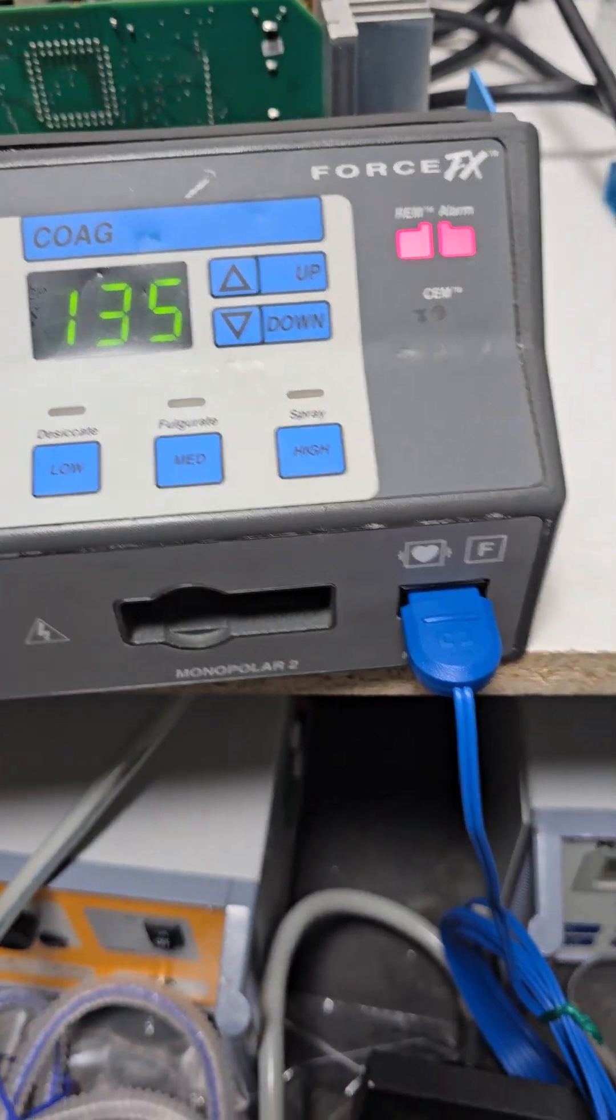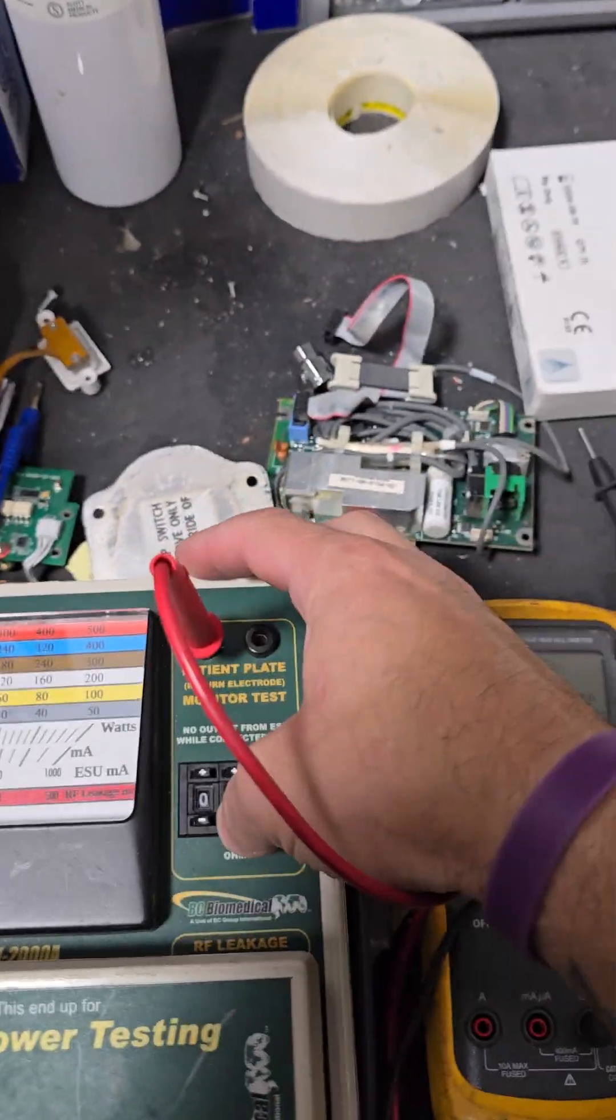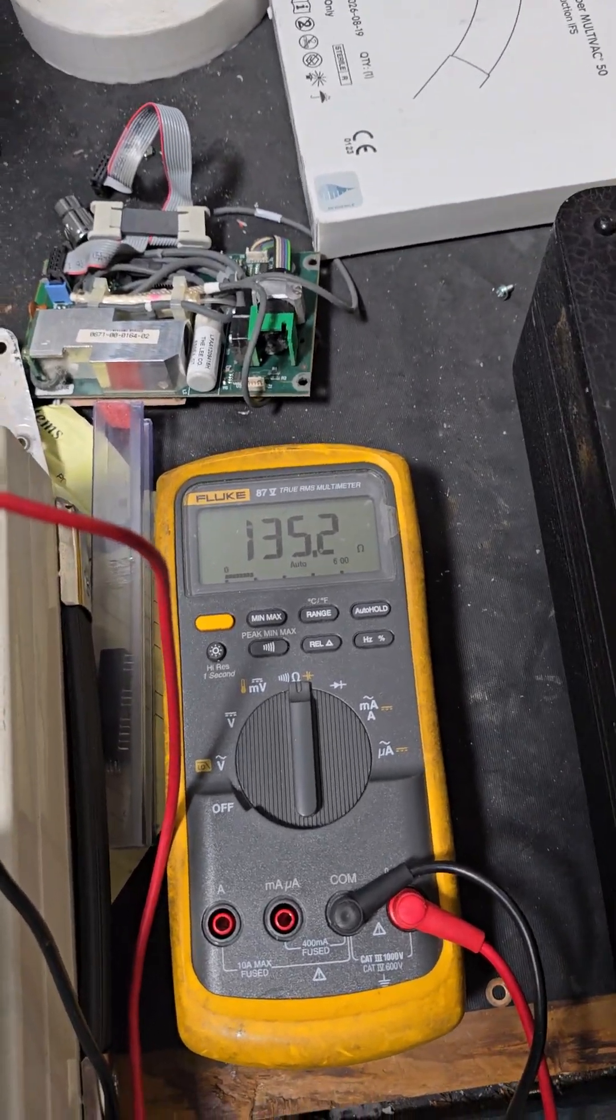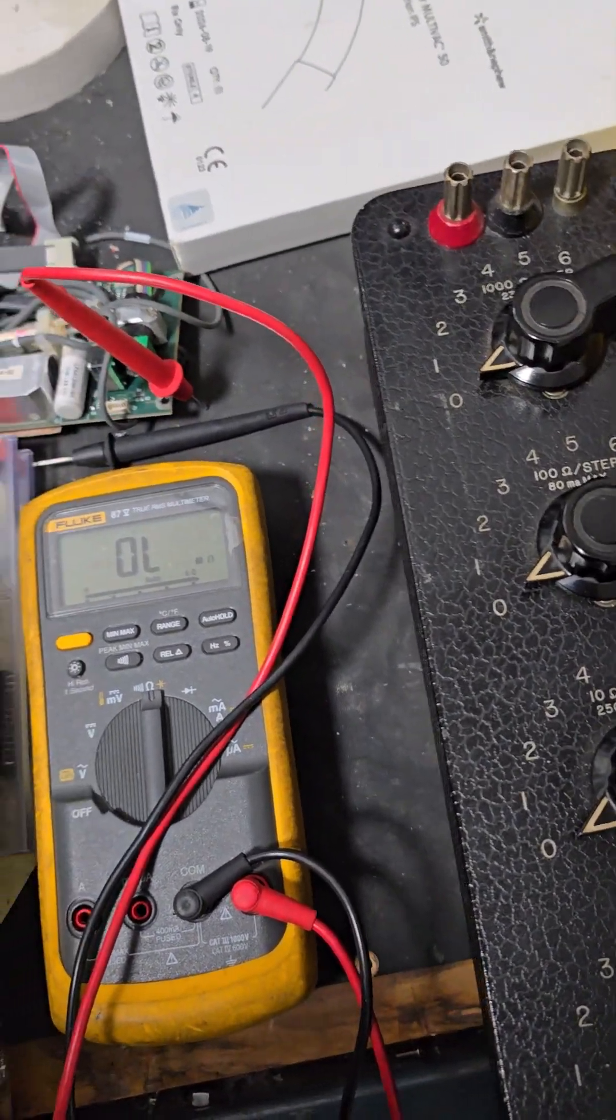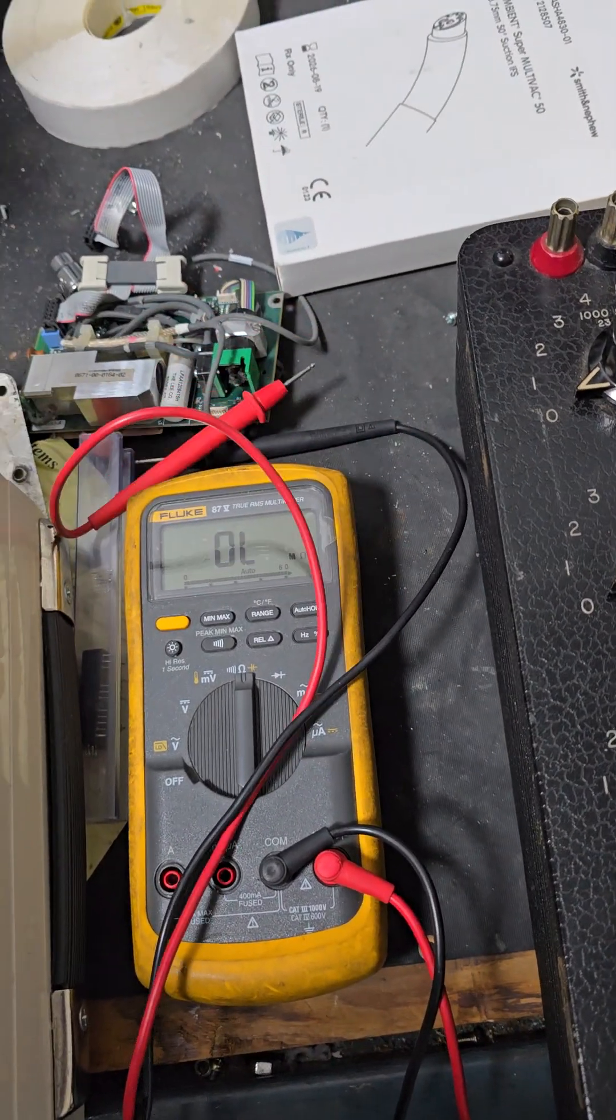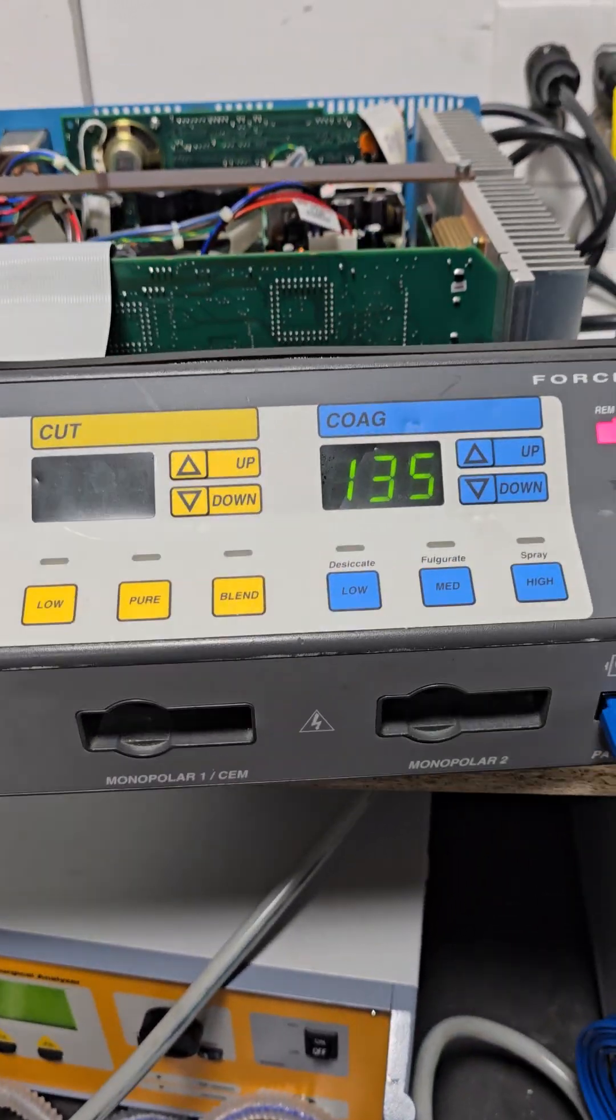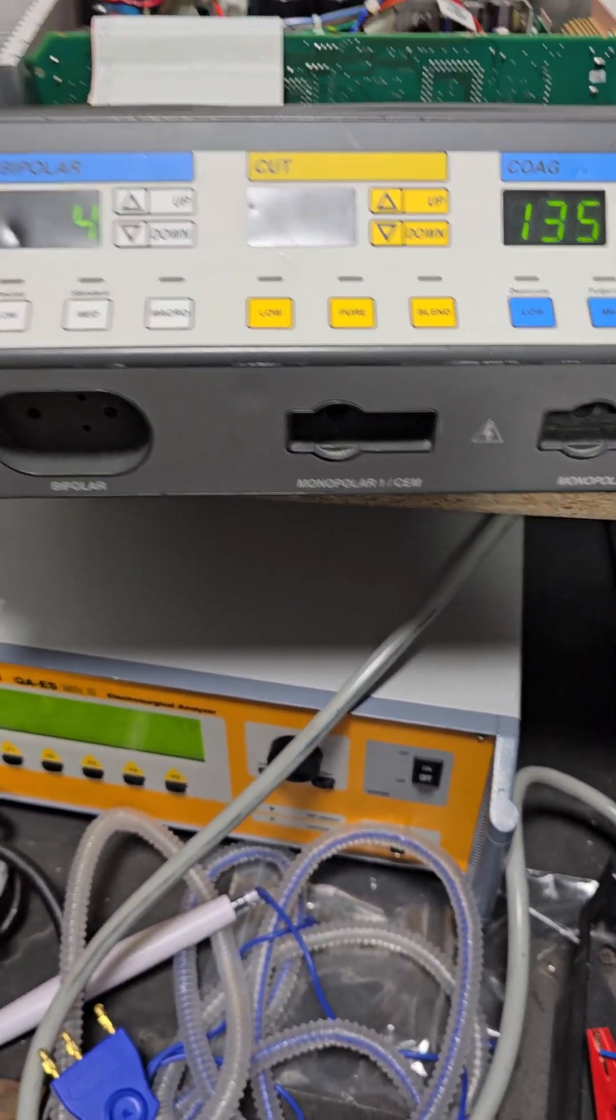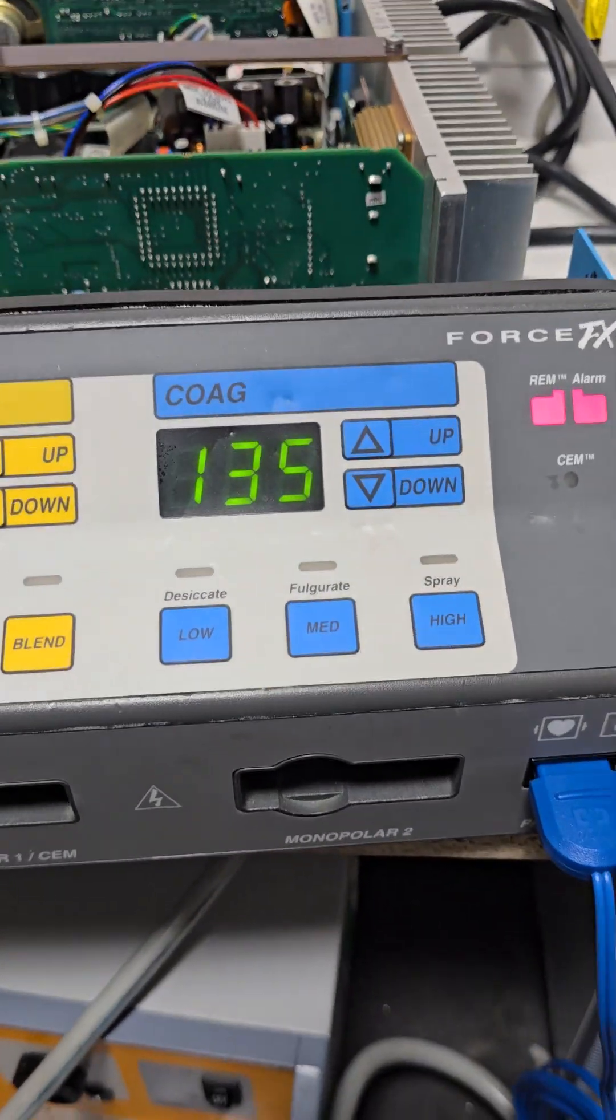Alright, oh, now 135. Here we go again. It's like I've done this a few times. So there's a 135. Remember, we said good 10 seconds. So 1 Mississippi, 2 Mississippi, 3 Mississippi, 4 Mississippi, 5 Mississippi, 6 Mississippi, 7 Mississippi, 8 Mississippi, 9 Mississippi, 10 Mississippi. You can spend a minute if you want, it doesn't matter. But I would not go less than a 10-second wait on this.